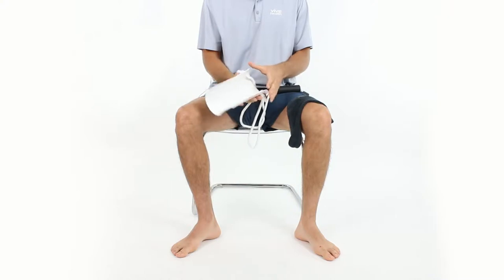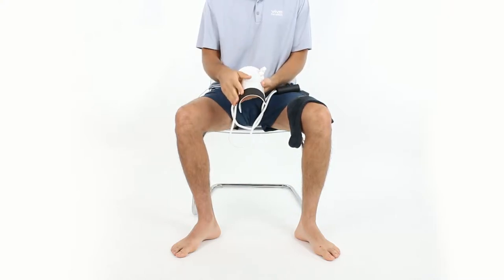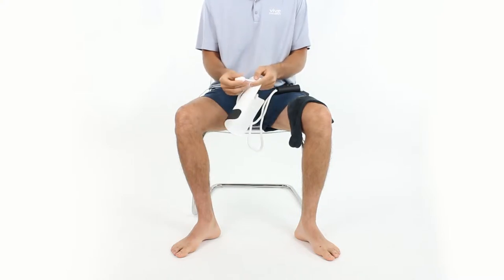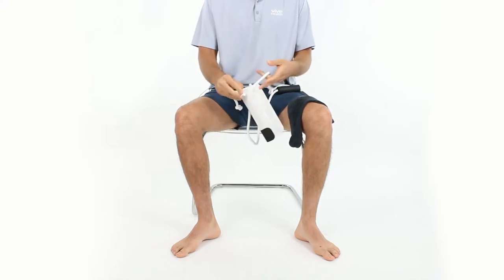You can see this is a half cylinder, and this is the channel that you're going to be putting your foot through. There's a pad on the back that provides some resistance to the sock when you put it on there, so it doesn't just fly off when you put it on your foot. And then depending upon your height and your arm length, you can adjust with these clips here that allow you to adjust the pad.